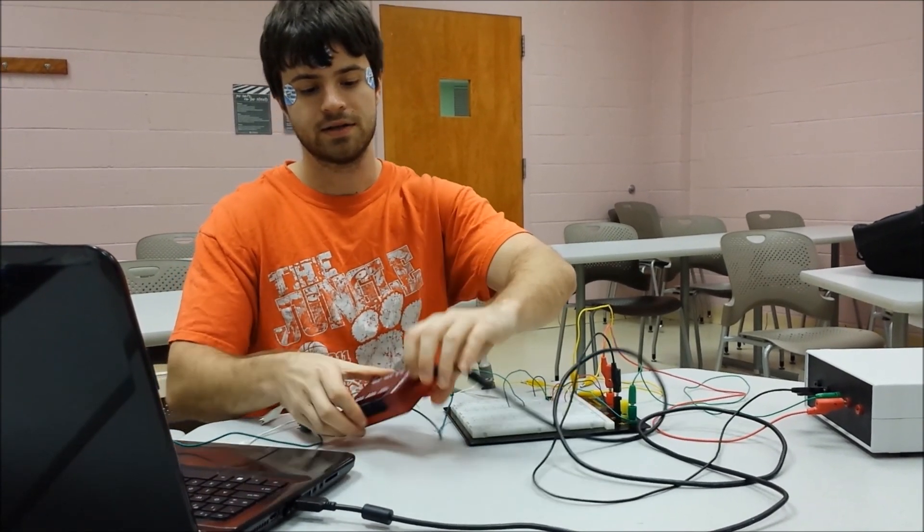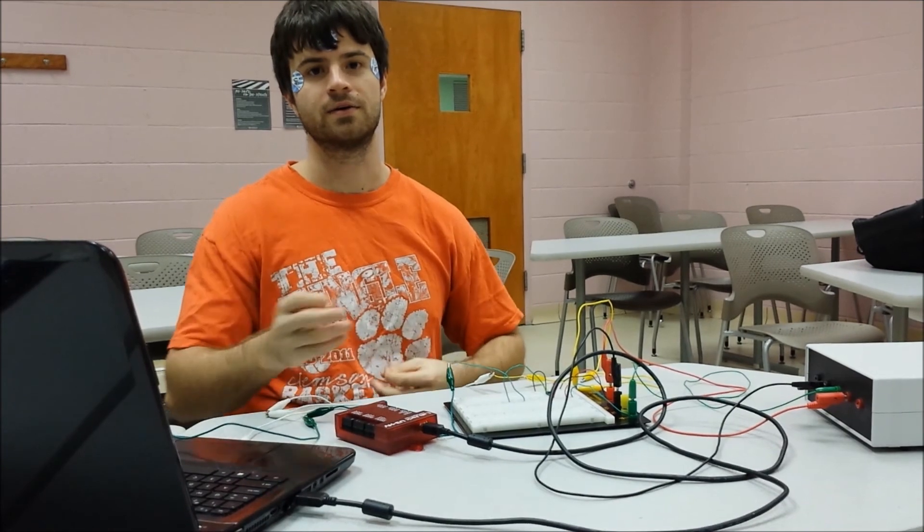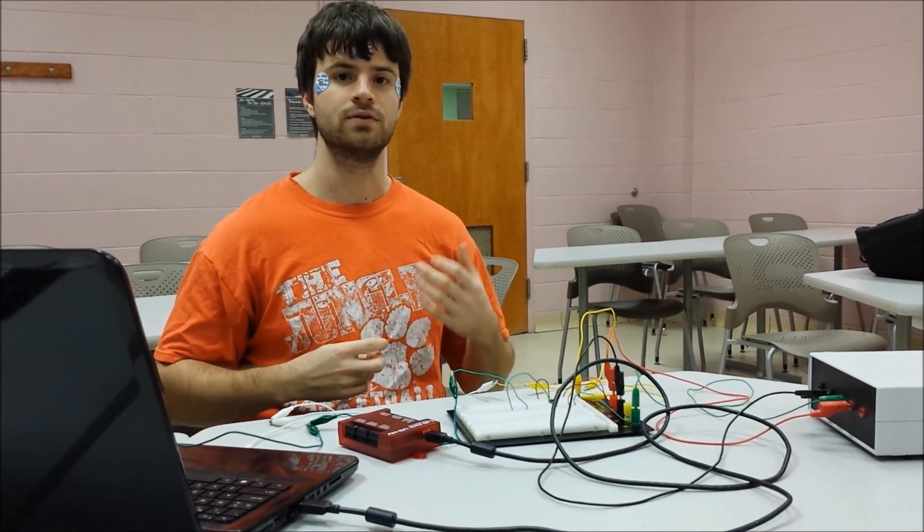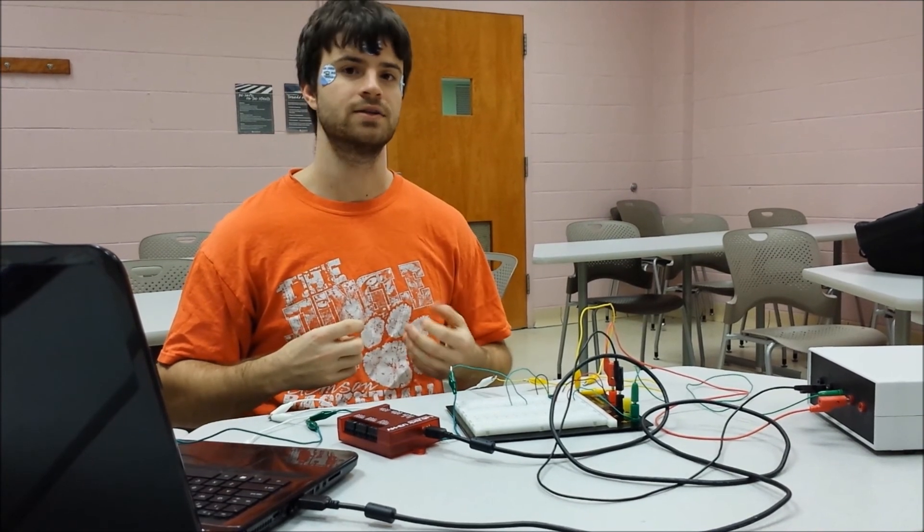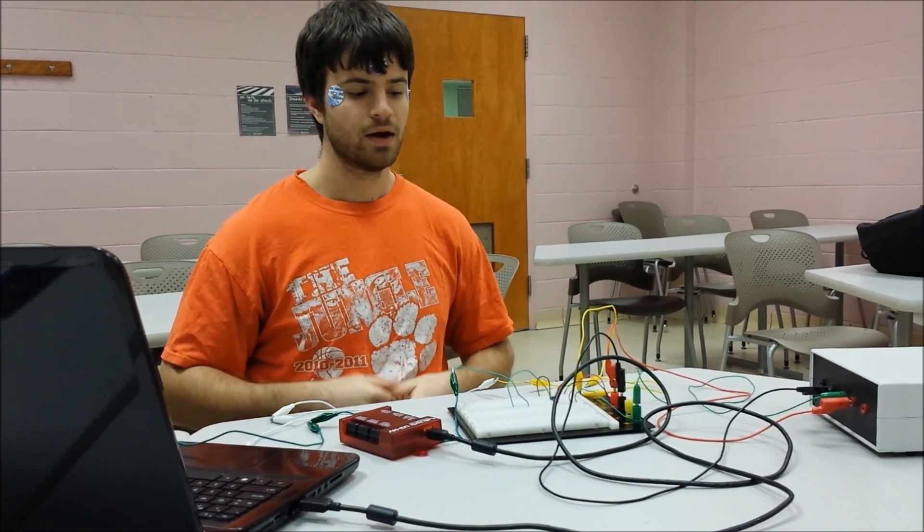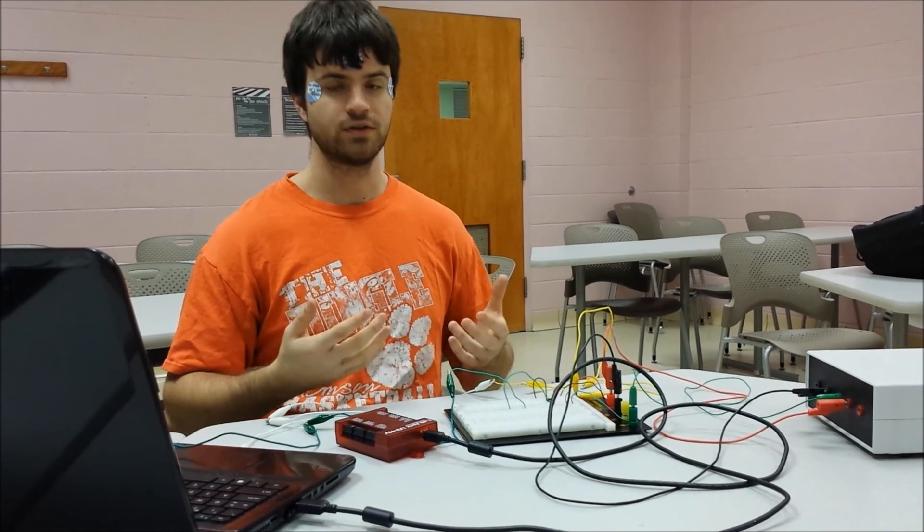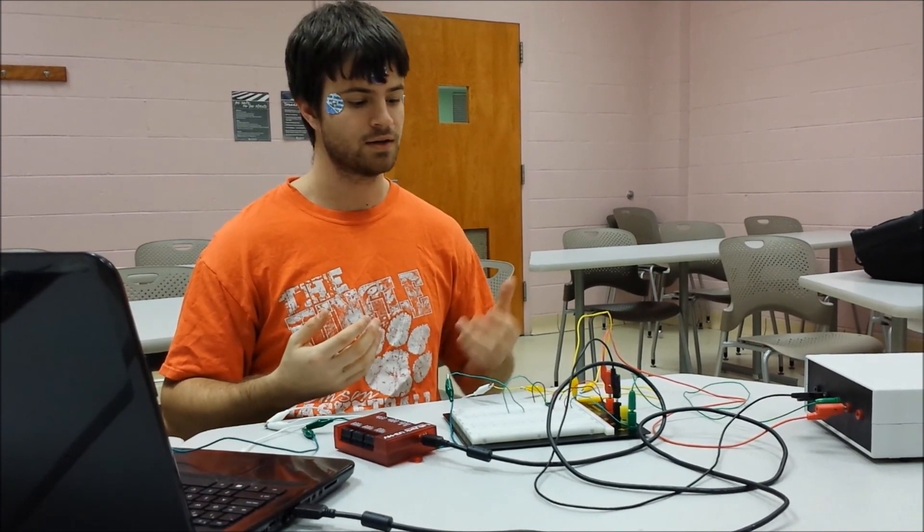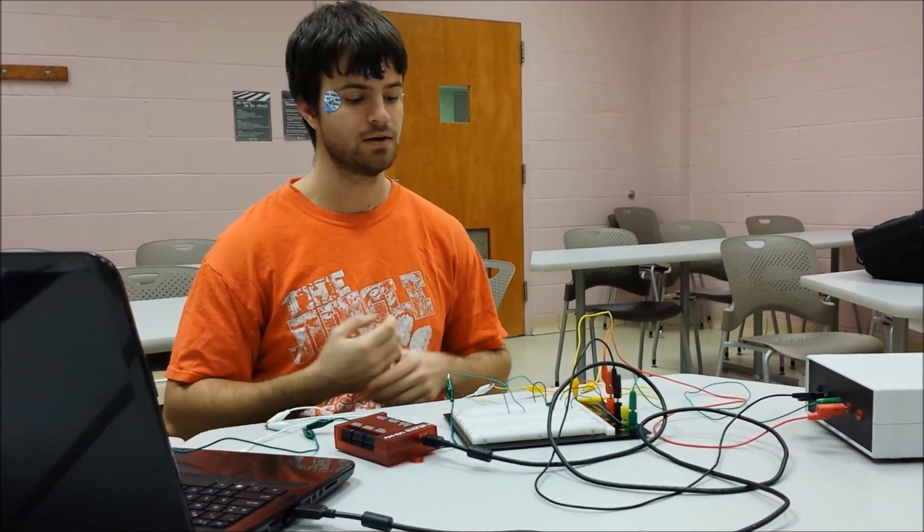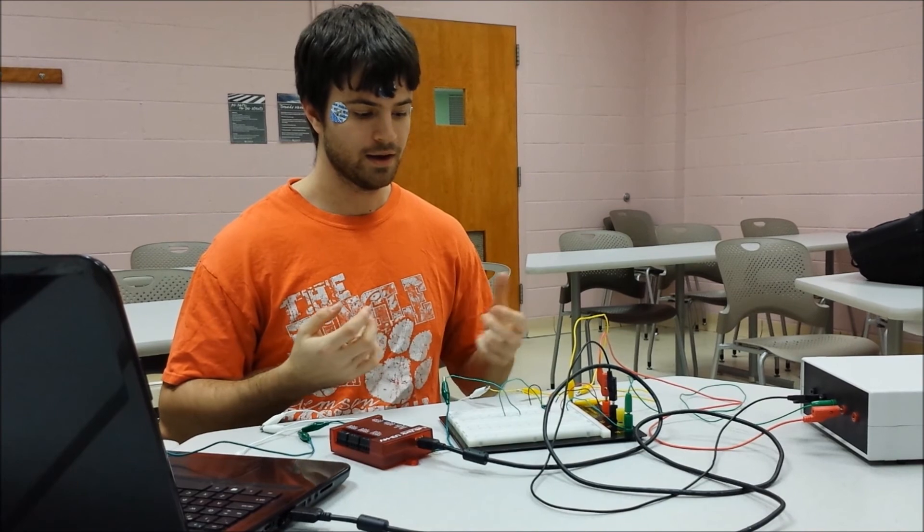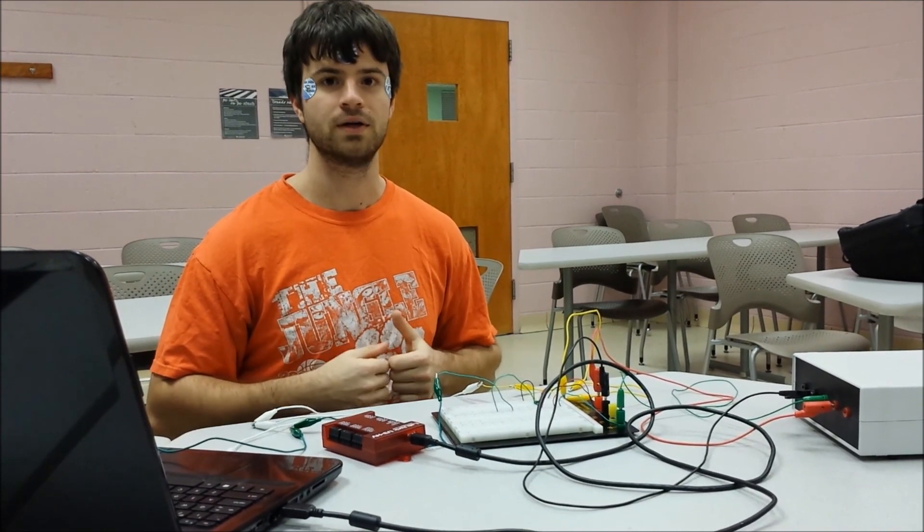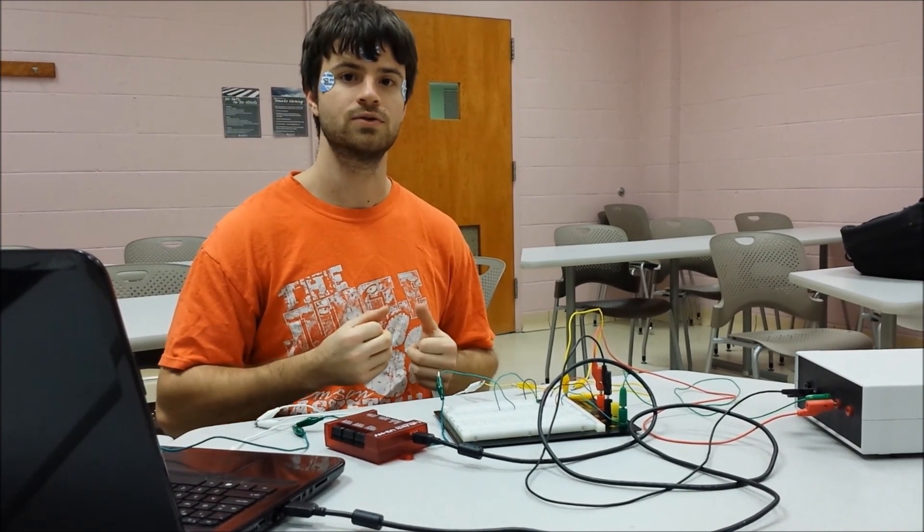The lab jack then takes the signal and feeds it into the computer, where you can do the filtering, the peak detection, and displaying the slides using a program called LabVIEW, which is the way we're doing it. If you want, you can filter the signal electronically after it's been into the differential amplifier, but for right now we're choosing to digitally filter the signal. And once you have all this done, you should be ready to control the PowerPoint.